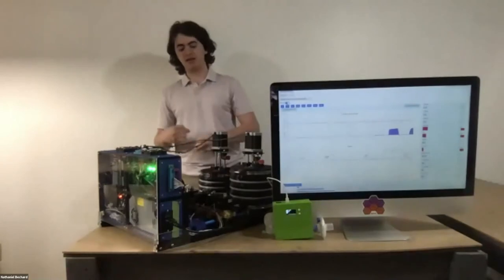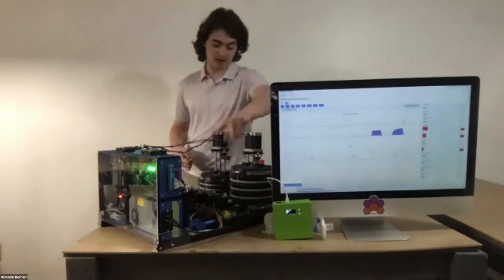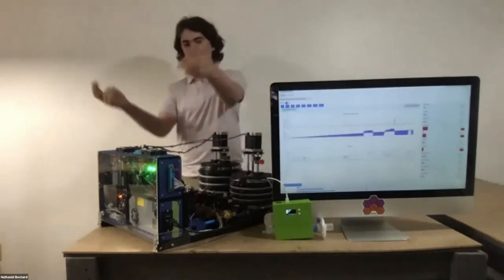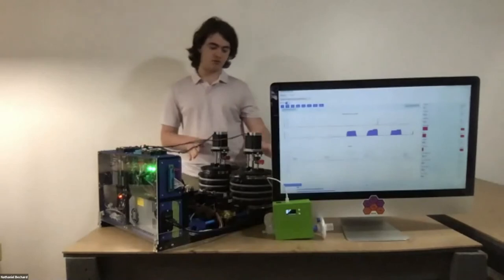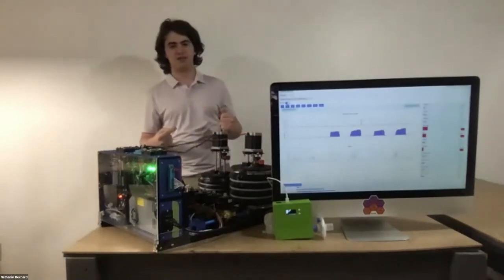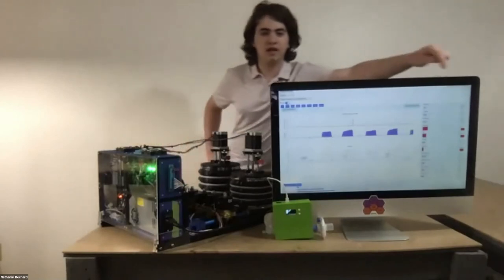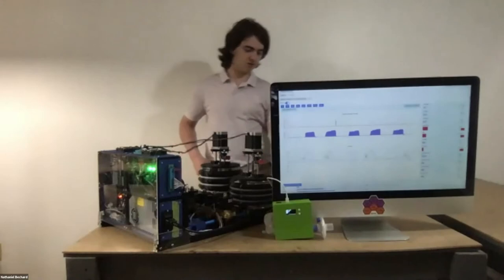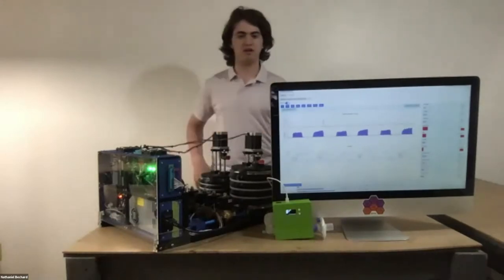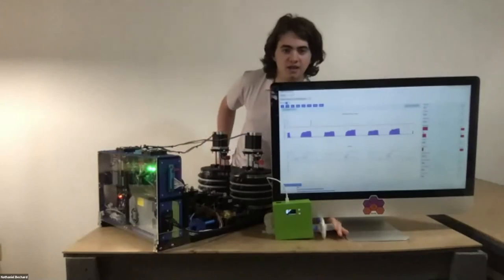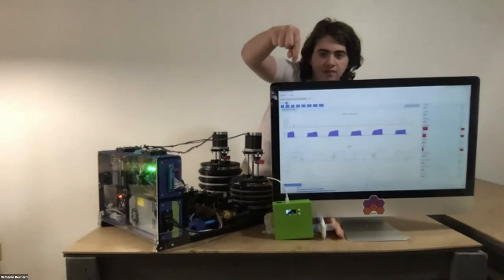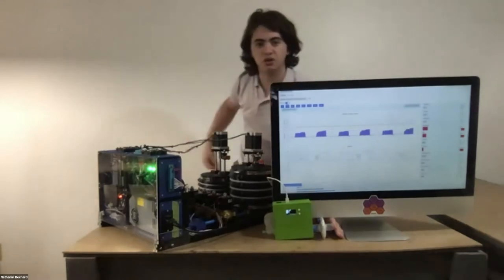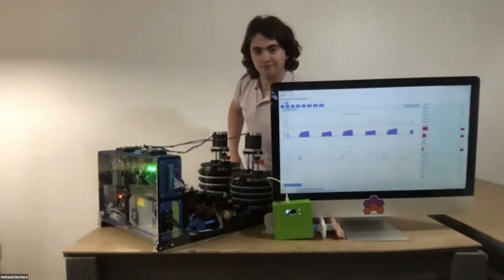And that loud clicking you hear is the valves switching different types of routing so that you can suck air into the bellows at the right time and push air out. This is also very useful for oxygen mixing system, although that's not yet implemented. I believe you should be able to see some displays coming out on the VentMon. Of course, I don't really have a test lung on there. We're not quite ready for that. But I can sort of block it up a little bit and put a bit of resistance in the system, and I think we should just see the pressure go up, although I can't quite see that screen very well.